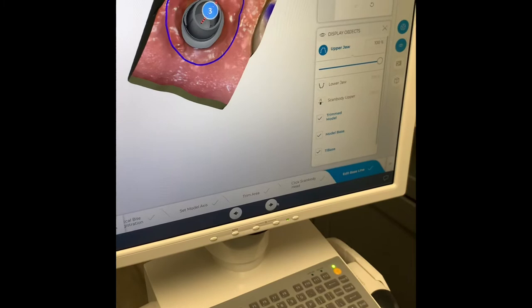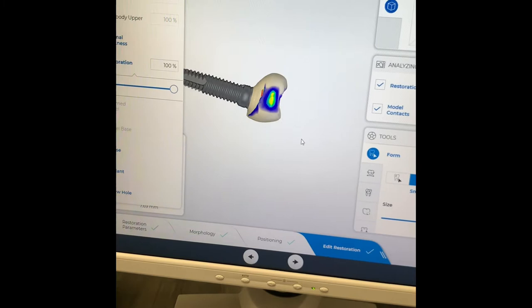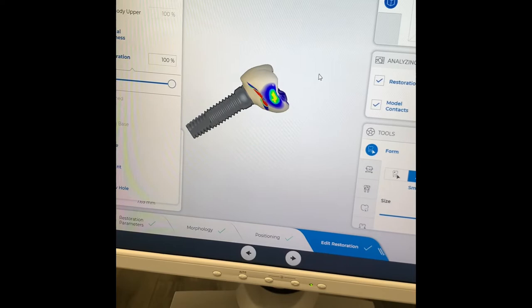And then you get a proposal and you just design like you always do. So this is all we did — just design this crown there, just like you always do. I just kind of smoothed out all these edges down right in there, make sure that I didn't have any of that baby blue, so you have that thickness. And that's it.